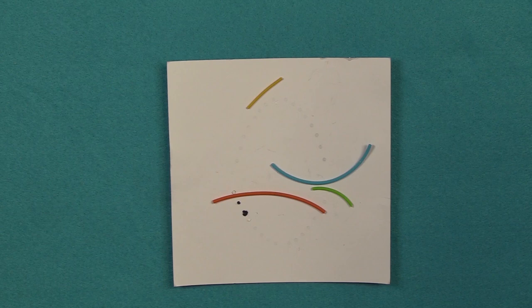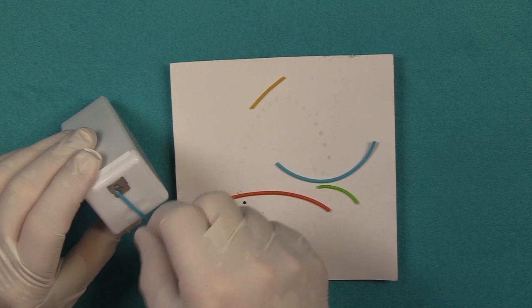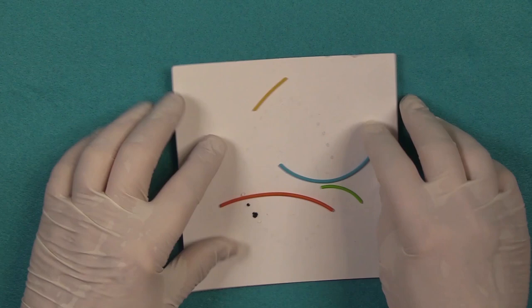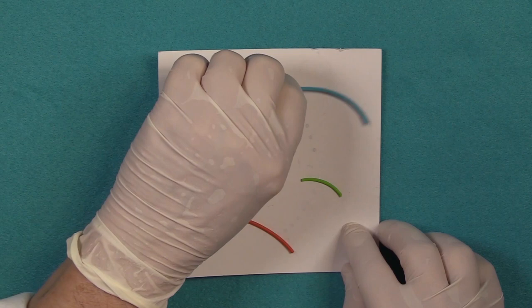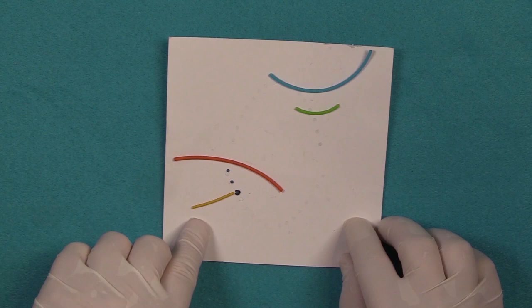Now for those of you that are not familiar with this product, the Wedgetts Cord comes in a container, something like a floss dispenser, and you just pull off and tear off what you need. The product comes in latex and non-latex. The colors denote latex versus non-latex. The non-latex is the lime green size small and the turquoise size large. In the latex version we have the yellow size small and the orange size large.